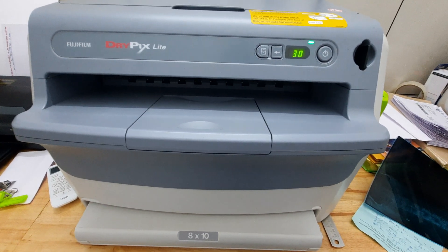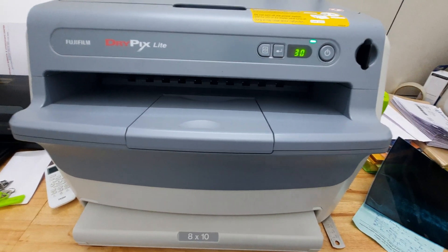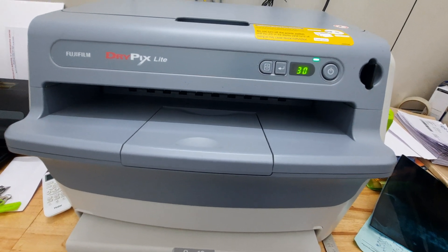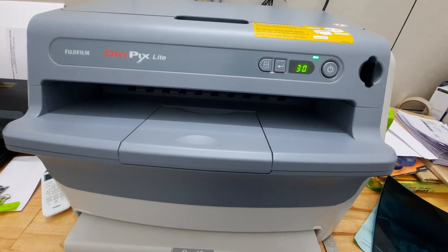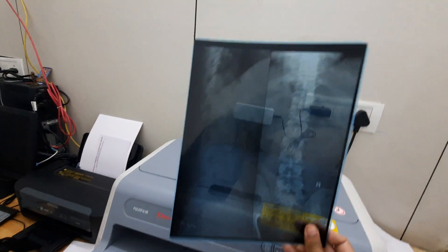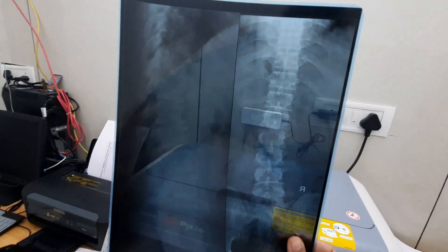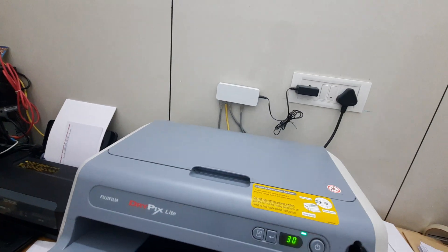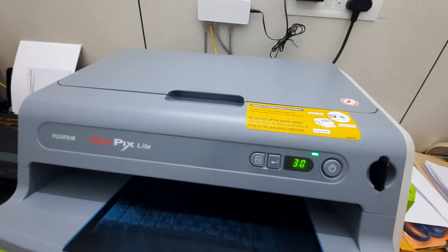This is the printer. Once the image is received on the computer screen from the CR reader, we can give the print command. Once the print command is given, we get the printout of the x-ray images. This is how the printout is obtained.